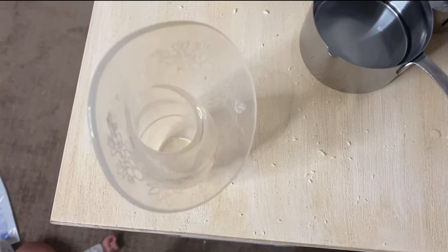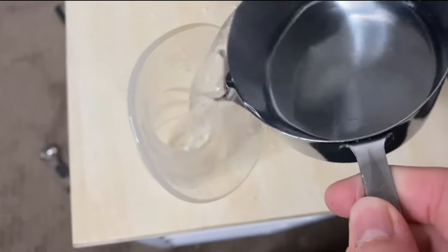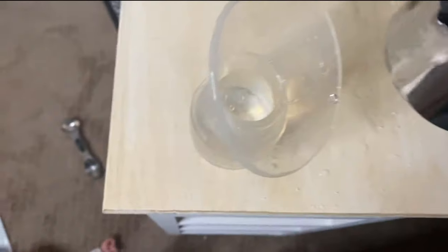These have gained a lot of popularity over the past few years and I just think they are fantastic. They're great for catching drip milk, but they're also great for getting rid of clogged ducts. You're going to take about a half cup of water and pour it in here.